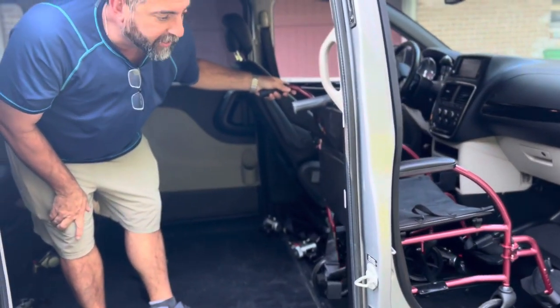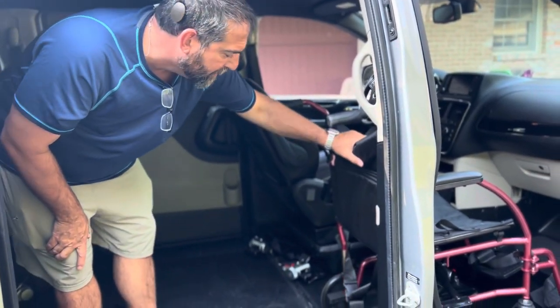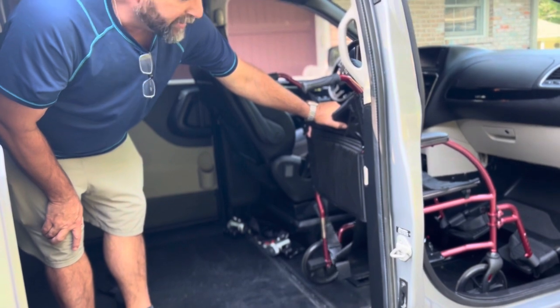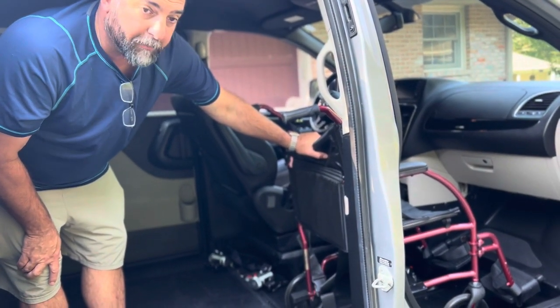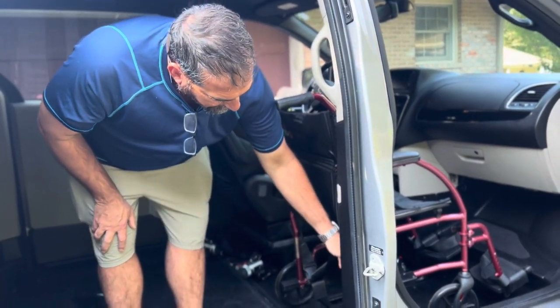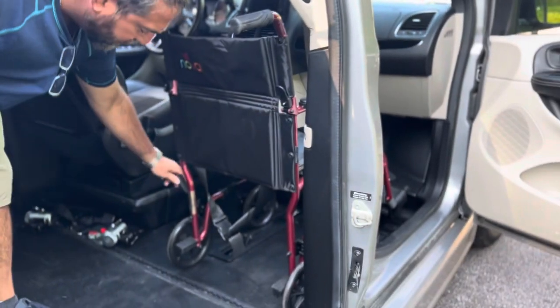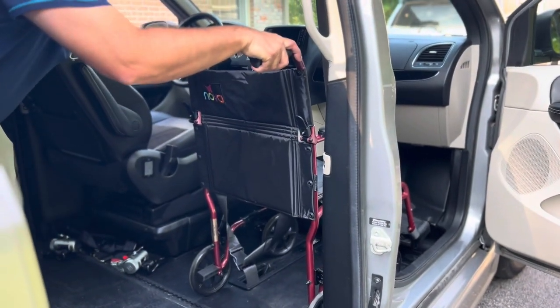In this configuration the front seat has been removed and the wheelchair passenger is going to sit up front. You simply put the wheelchair in position. There are four steps to this process. Step one is to make sure that the wheelchair wheels are secured with the brake that they come with, so that the wheelchair won't move.